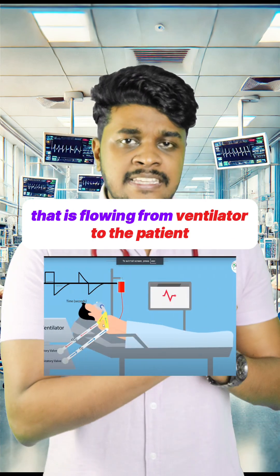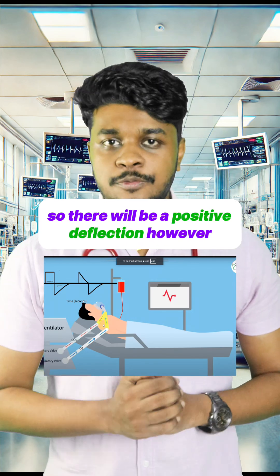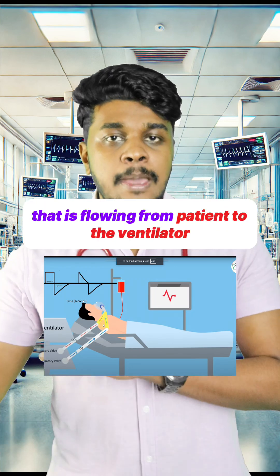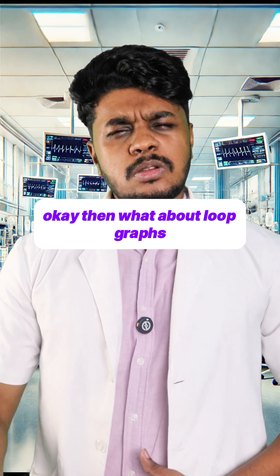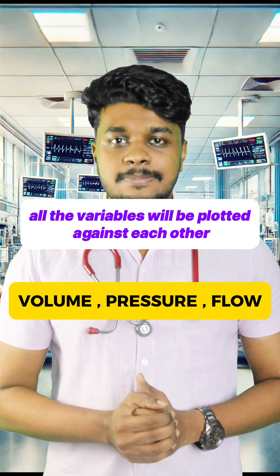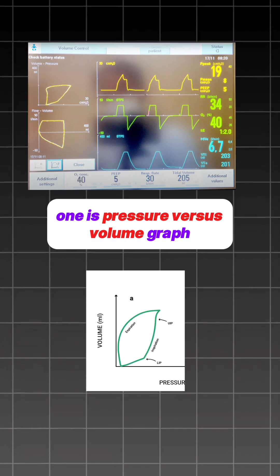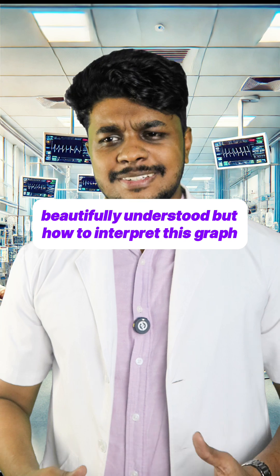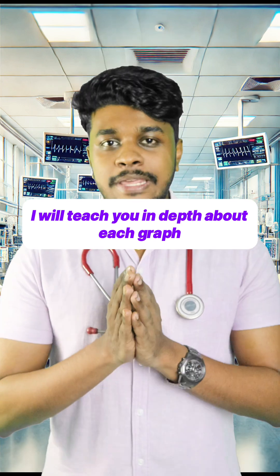The flow graph has positive and negative deflections because during inspiration, air is flowing from the ventilator to the patient, so there is a positive deflection. However, during expiration, air is flowing from the patient to the ventilator, so there is a negative deflection. In loop graphs, all the variables are plotted against each other — one is the pressure versus volume graph, and the other is the flow versus volume graph.